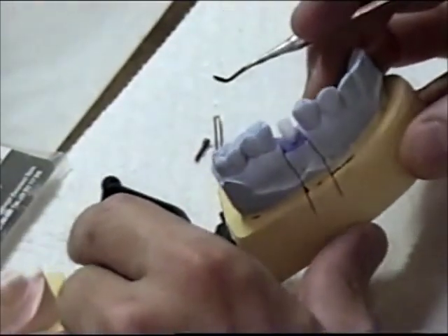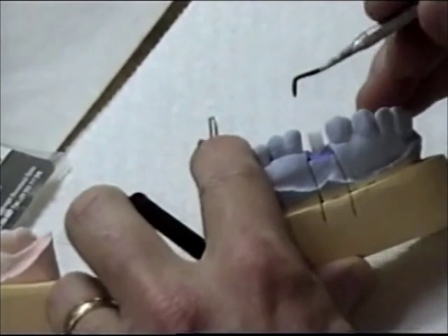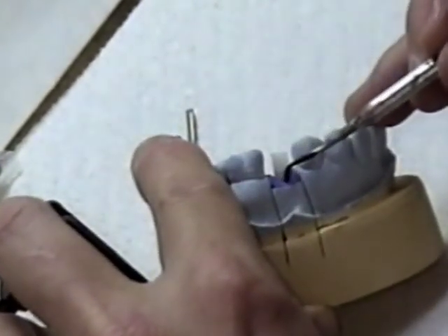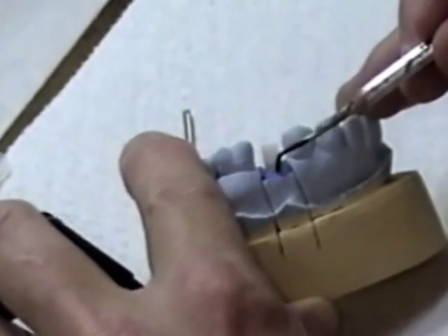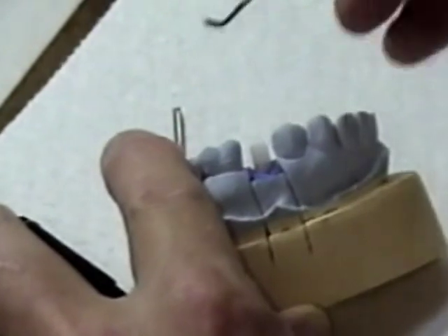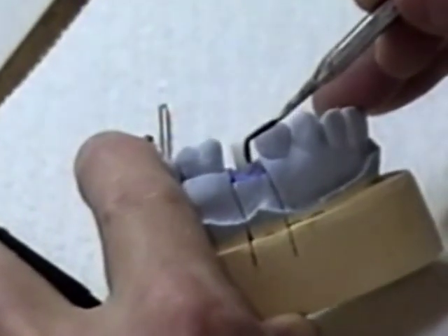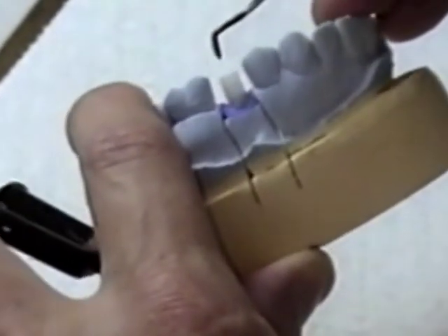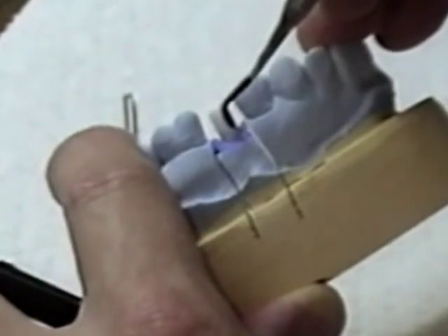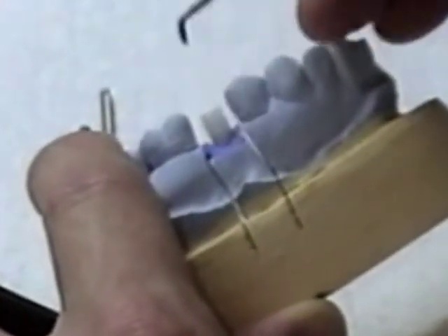You will have a cleaner burnout if you flood some wax on this plastic. Also, I am going to pay attention to getting wax all the way down to the implant base. We are going to have our margin subgingival here. When we make our crown, we are going to want to put the crown on top of this abutment and hide that margin subgingival so that it does not show in the mouth.